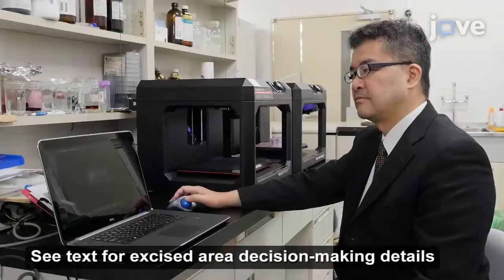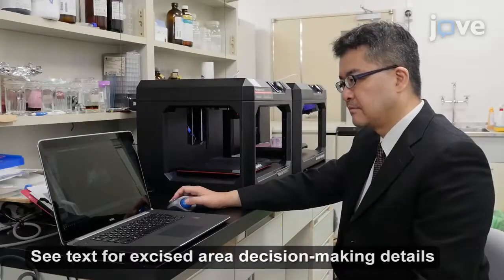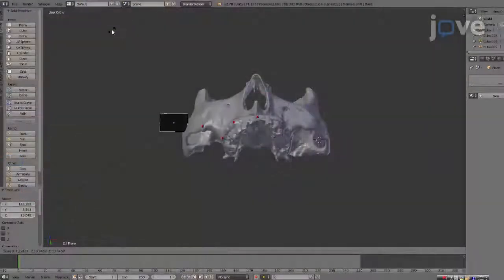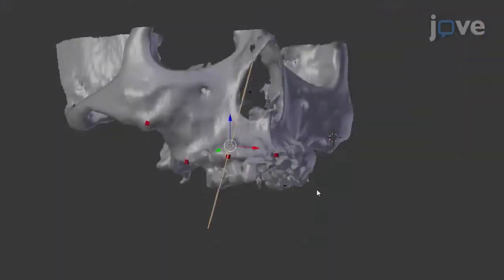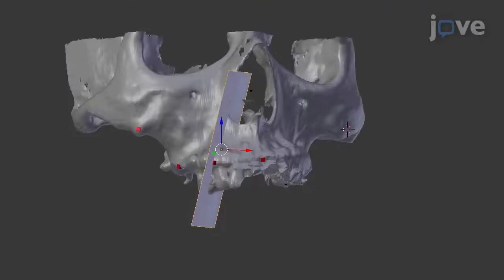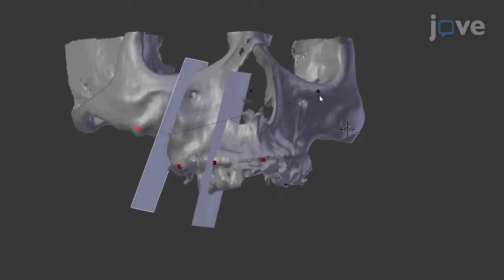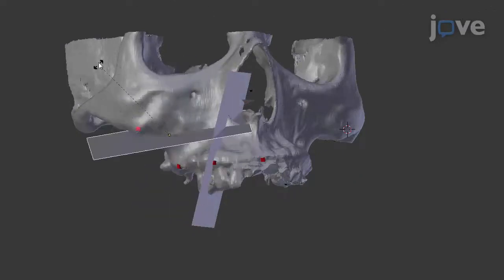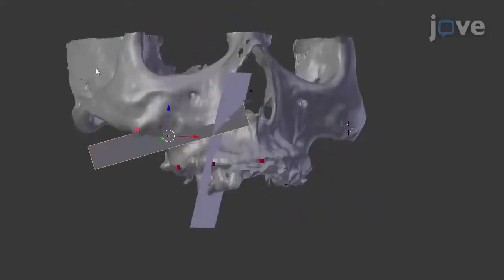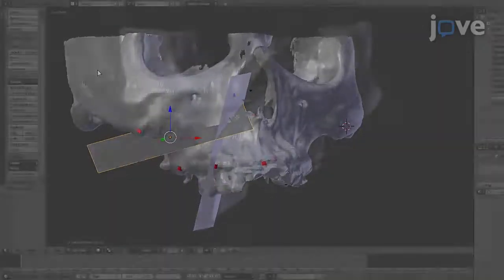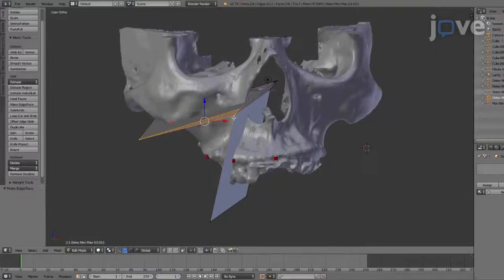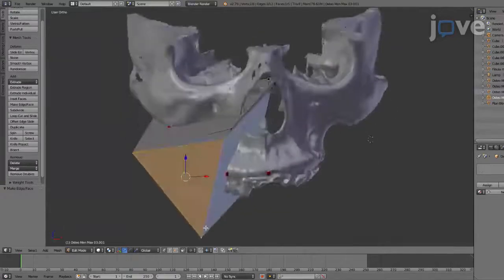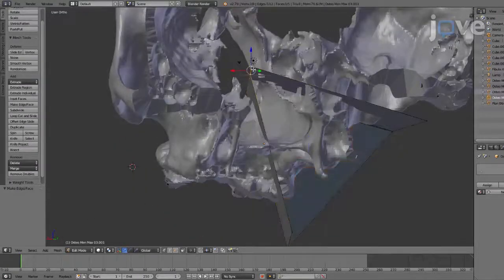After selecting the area of bone to be excised, make a large plane and place it on the border of the area for removal in the appropriate CAD software. Continue to place more planes until the entire area for removal has been surrounded, and select the vertices of the planes. Connect the planes by adjusting edges and faces in edit mode to surround the area for removal.